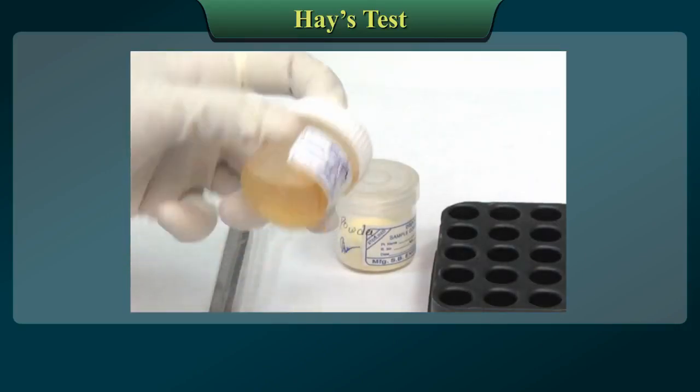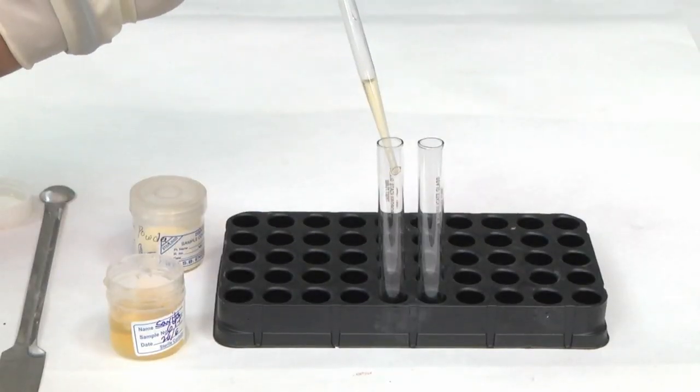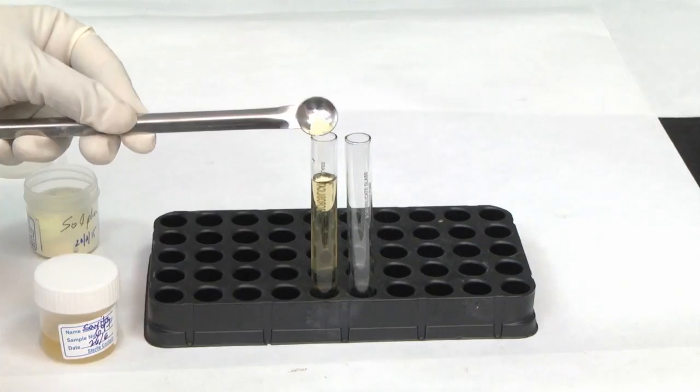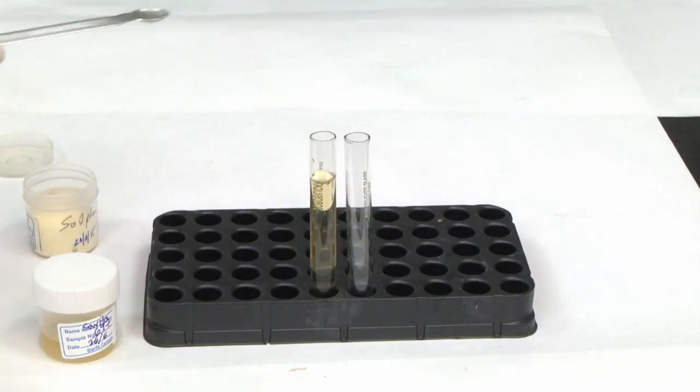Procedure: all standard precautions should be followed. Mix the urine sample well. Take 10 milliliters of urine in a test tube and put it in the standing position in a test tube rack. Add or sprinkle dry sulfur powder on the surface gently and observe the particles.